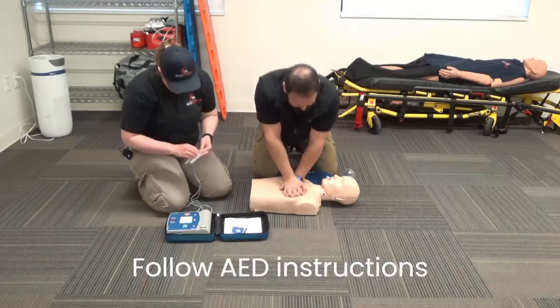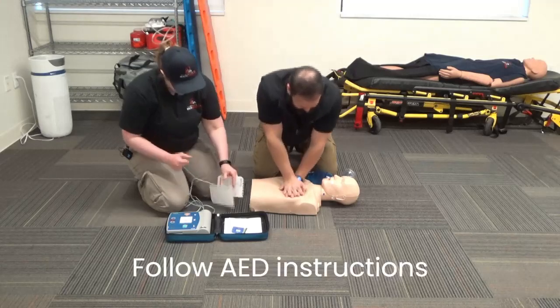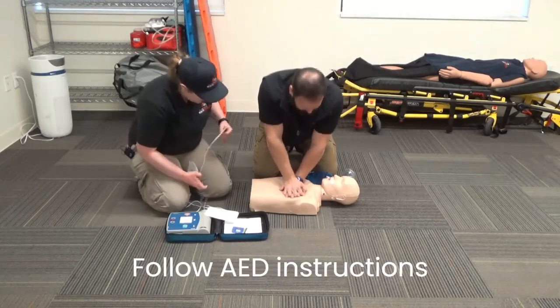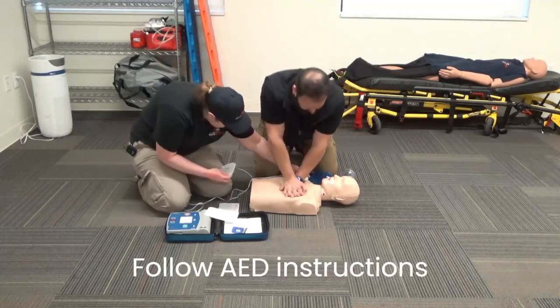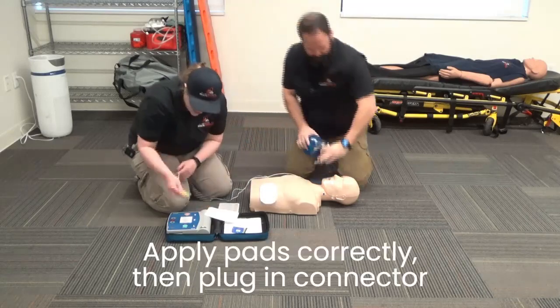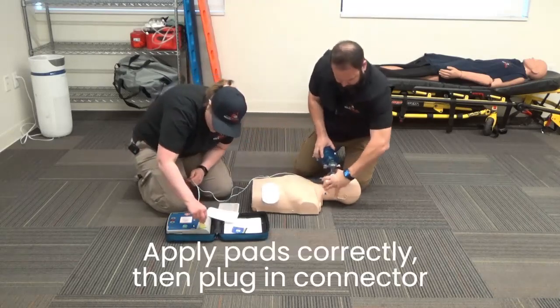Following the instructions. Applying pads to patient's bare chest. Applying pads. Plugging in the connector.